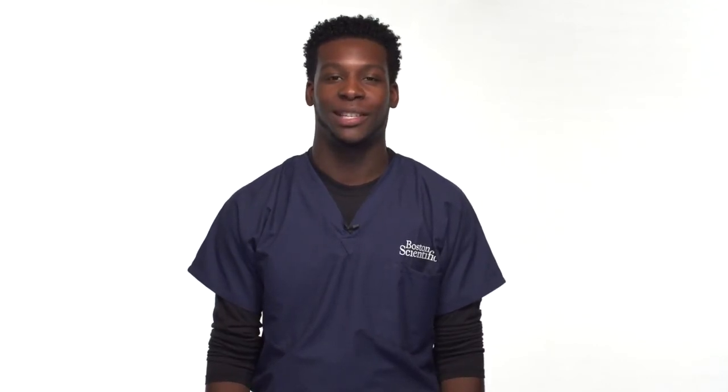Thank you for viewing the setup video for the SpeedBand SuperView Super7 multiband ligator. For more information, please contact your local Boston Scientific sales representative.